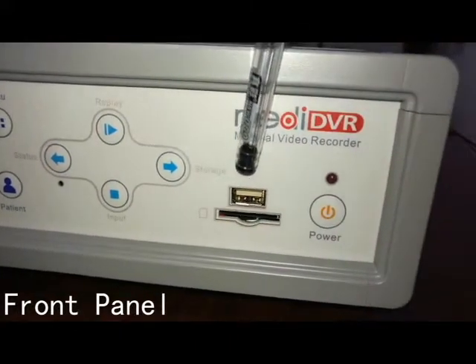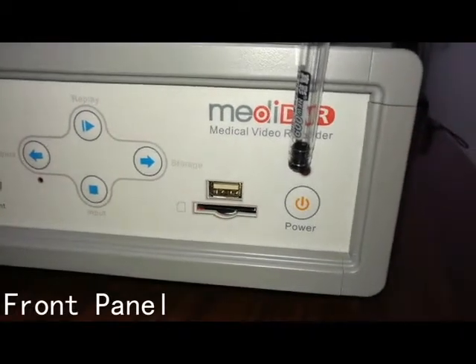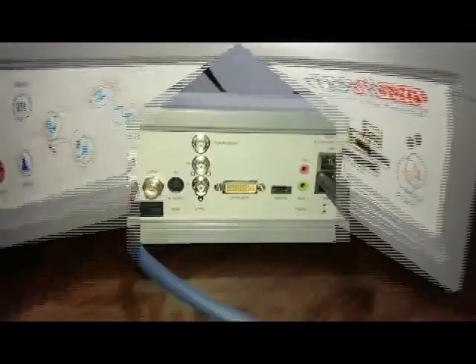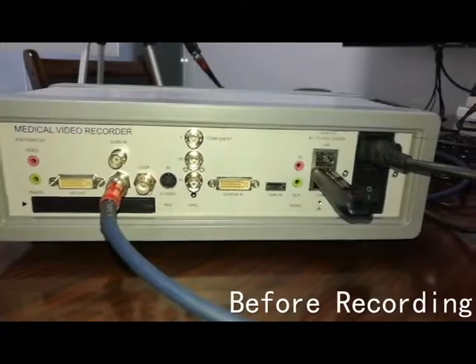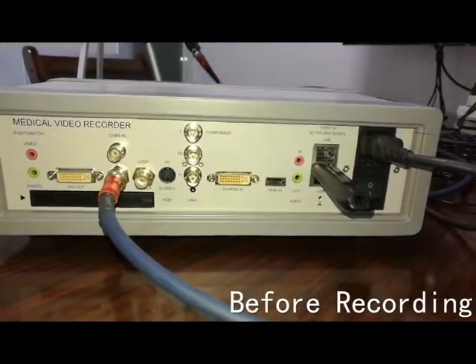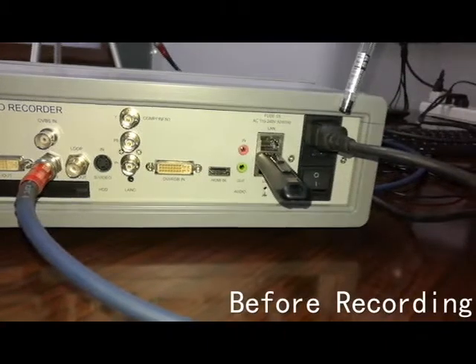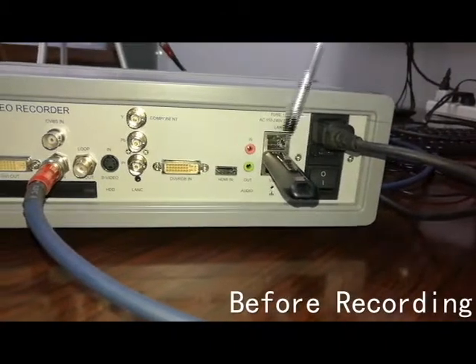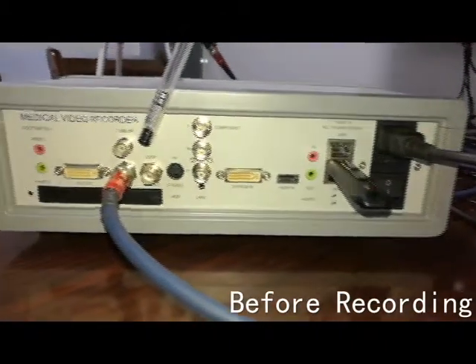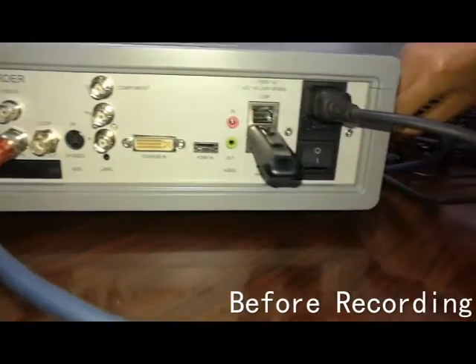Press the power button to start or shut down the MediDVR. Before recording, you need to at least plug in the power cord, a storage medium, and an input signal so that you can successfully record video or capture photos.